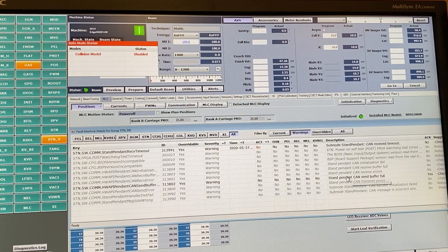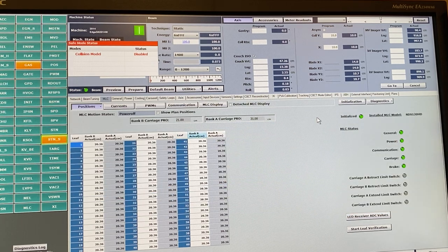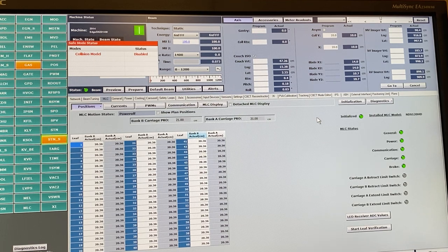We also have a warning about the stand pendant, which is why that indicator is orange — but again, it's only a warning, not a fault, so it would be orange rather than red. That's it for this video on service mode. It's just an introduction; there's a lot more to cover, but I think that's good enough for now.